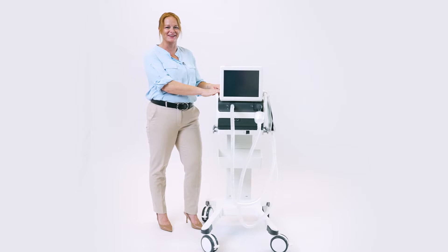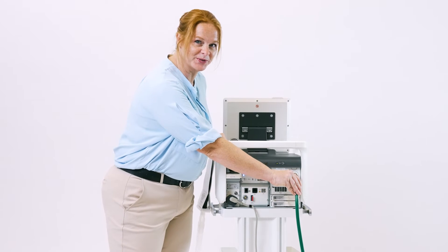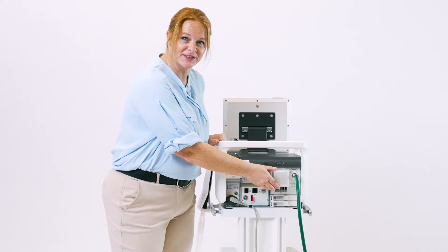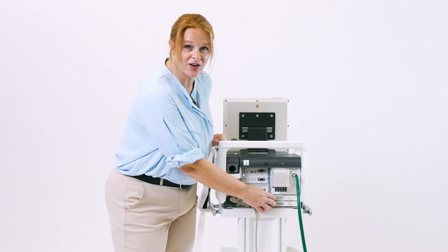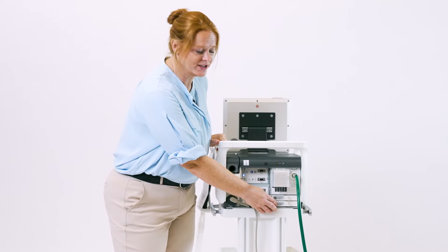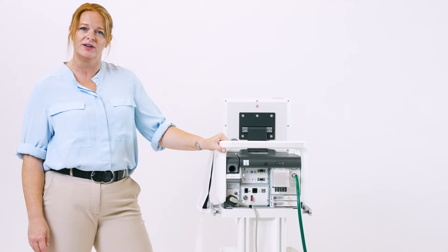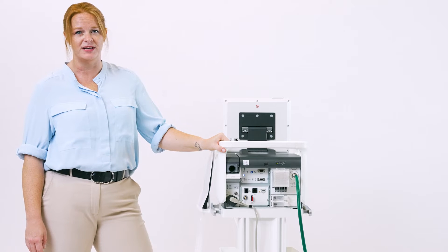Now let's start with the back of the ventilator. Plug in your power cord and your O2 hose. Make sure your air inlet filter is connected. Located down here are your two battery packs. The bottom one needs to be plugged in at all times and the second one is interchangeable to be used on transport, each lasting 120 minutes apiece.